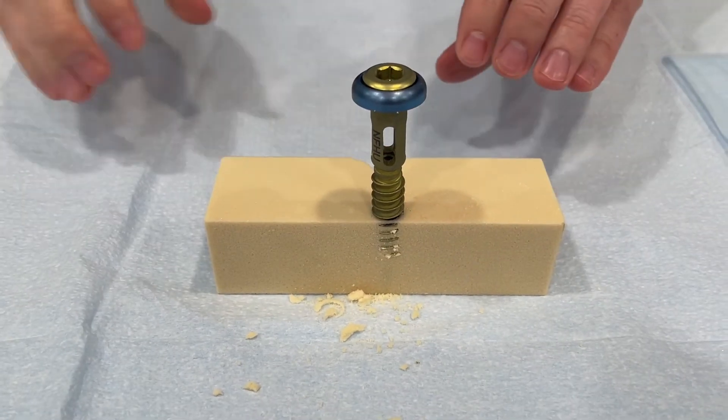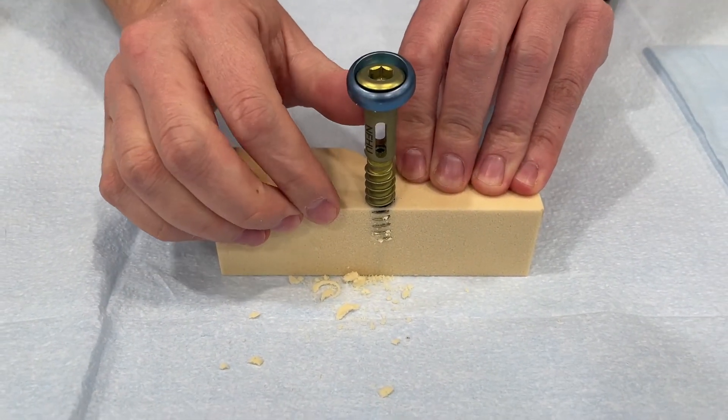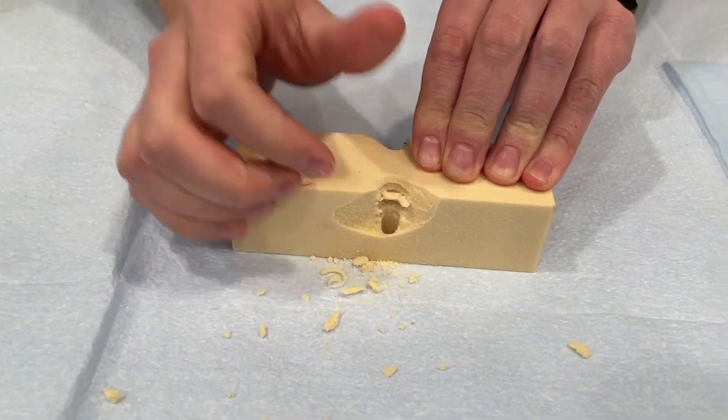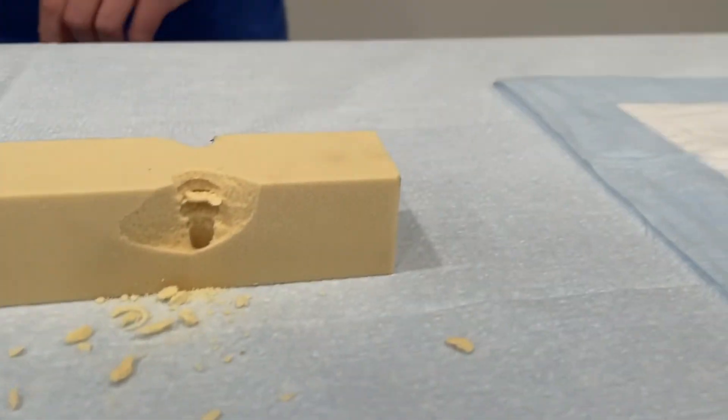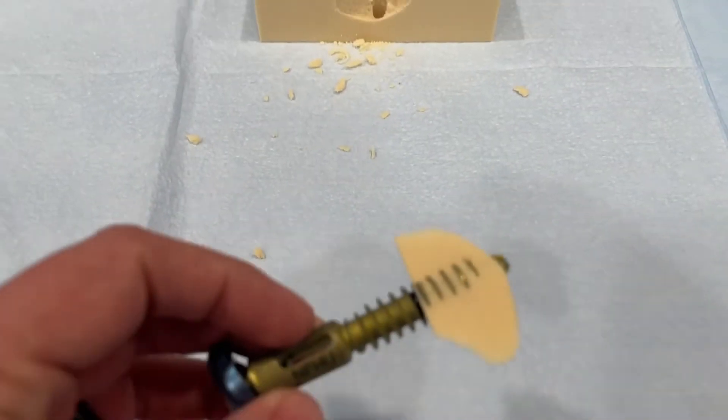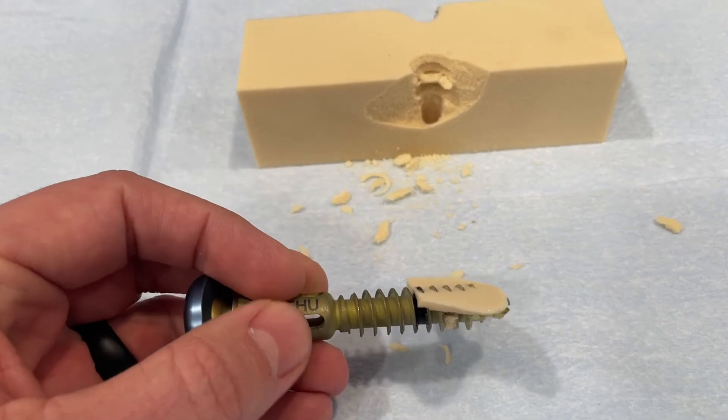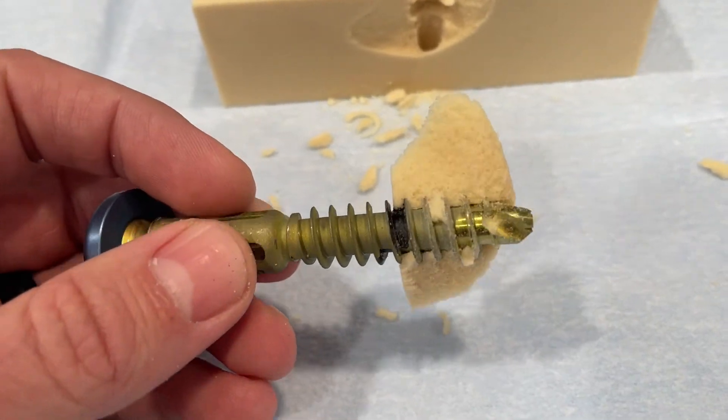Now I'm going to do the same thing and lever it out. Clearly took much more force. Knocked the whole screw down onto the ground. But here you can see the power of mechanical integration.